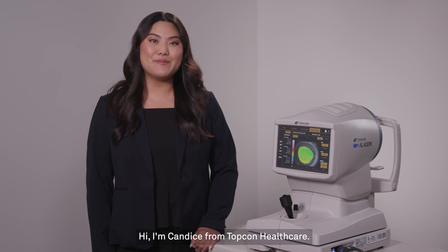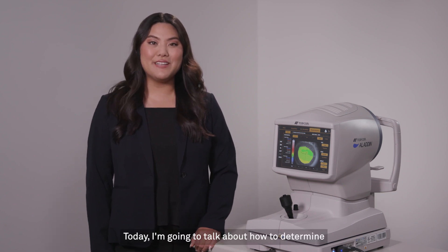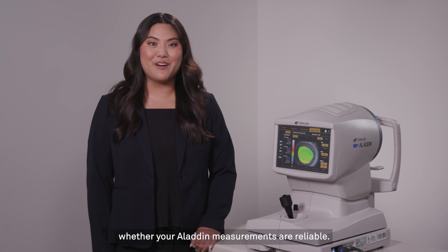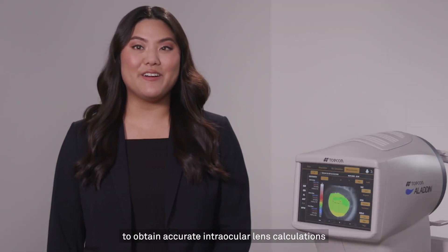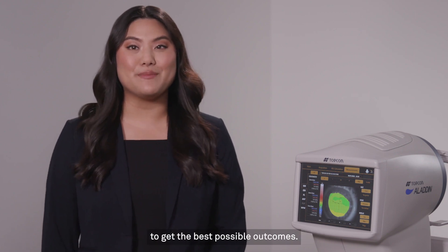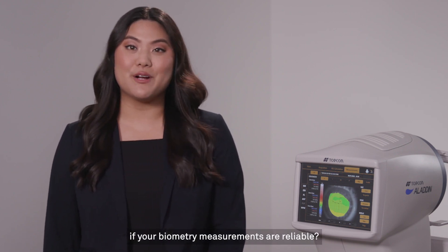Hi, I'm Candace from TopCon Healthcare. Today I'm going to talk about how to determine whether your Aladdin measurements are reliable. Precise measurements are important to obtain accurate intraocular lens calculations to get the best possible outcomes. So how do you know if your biometry measurements are reliable?